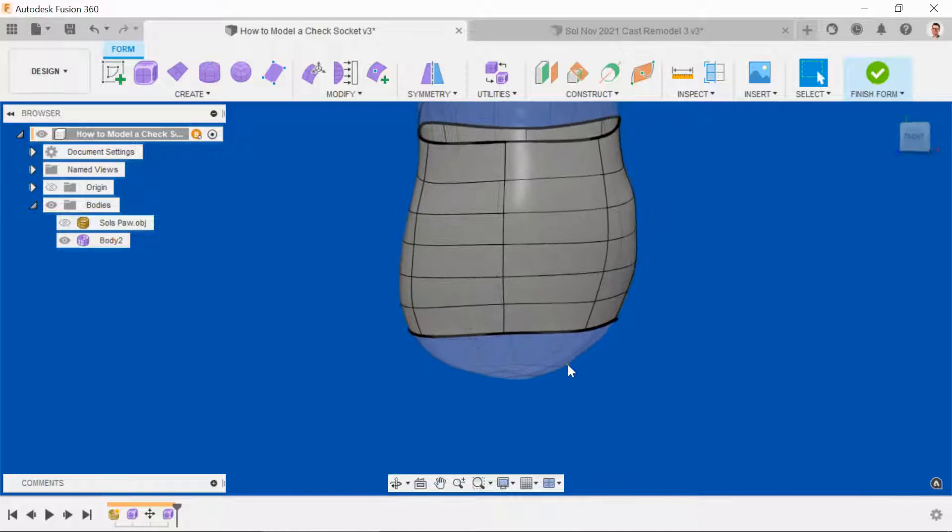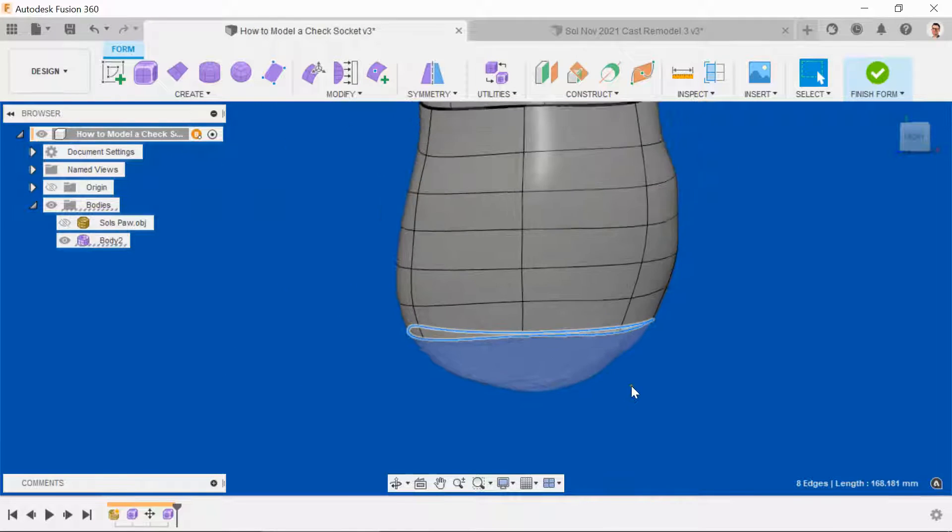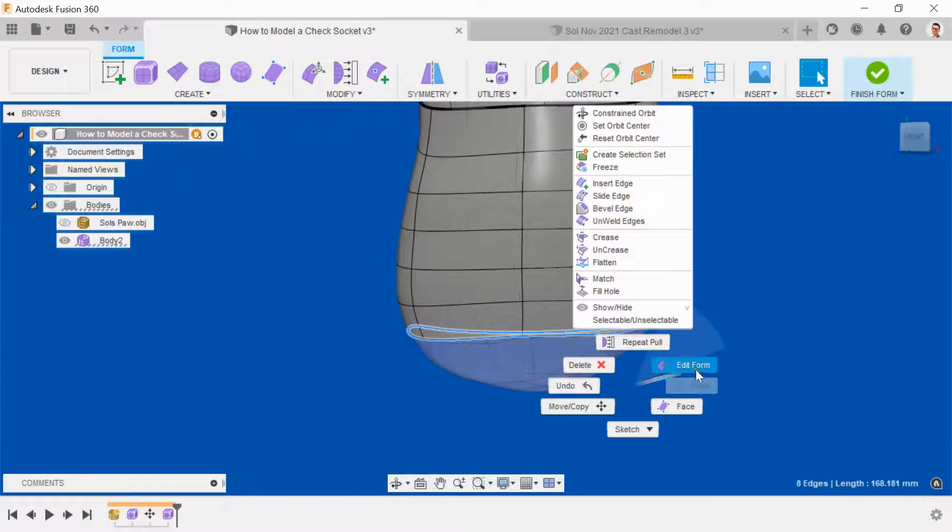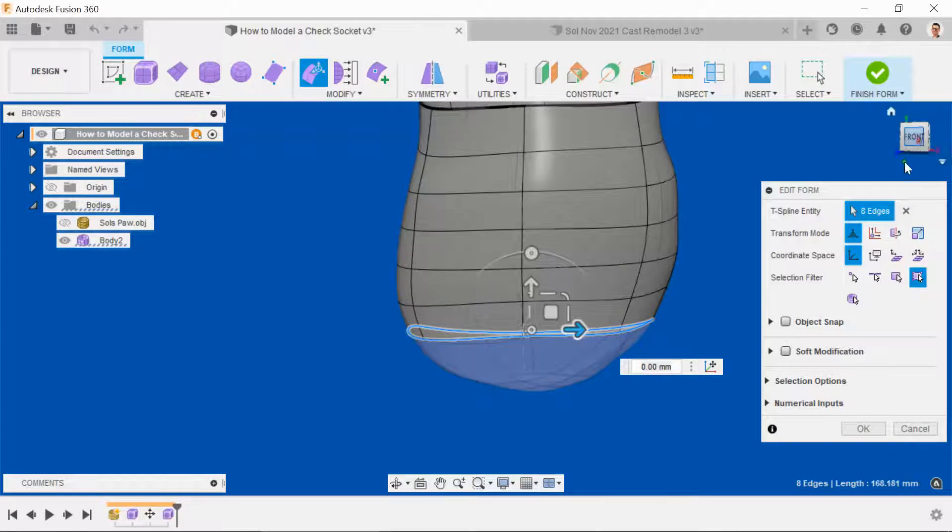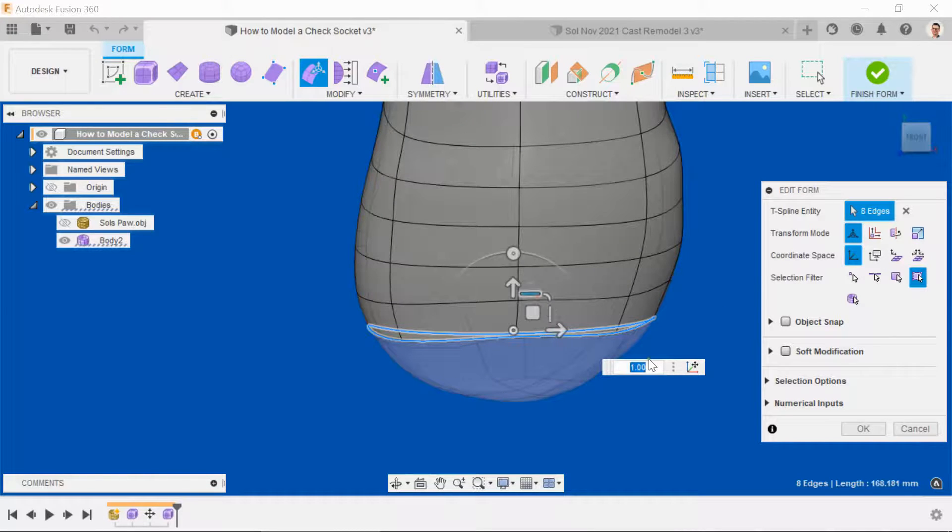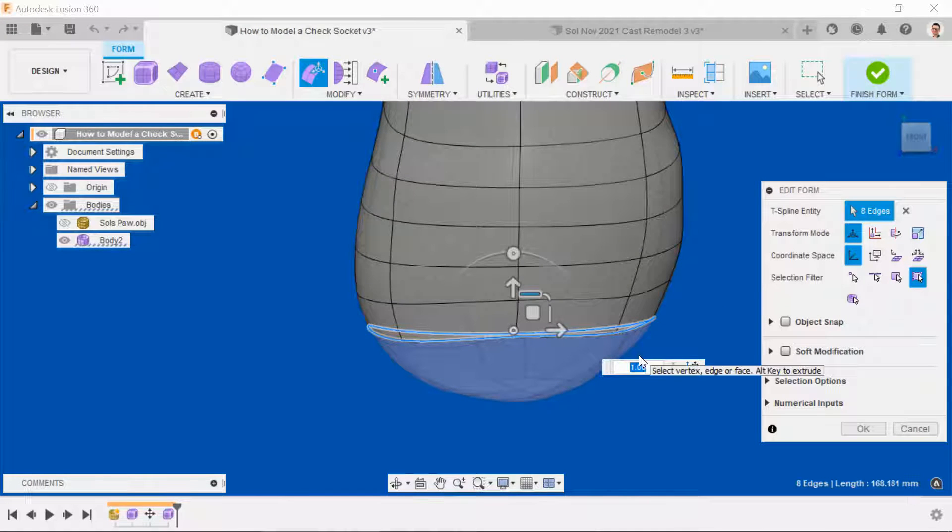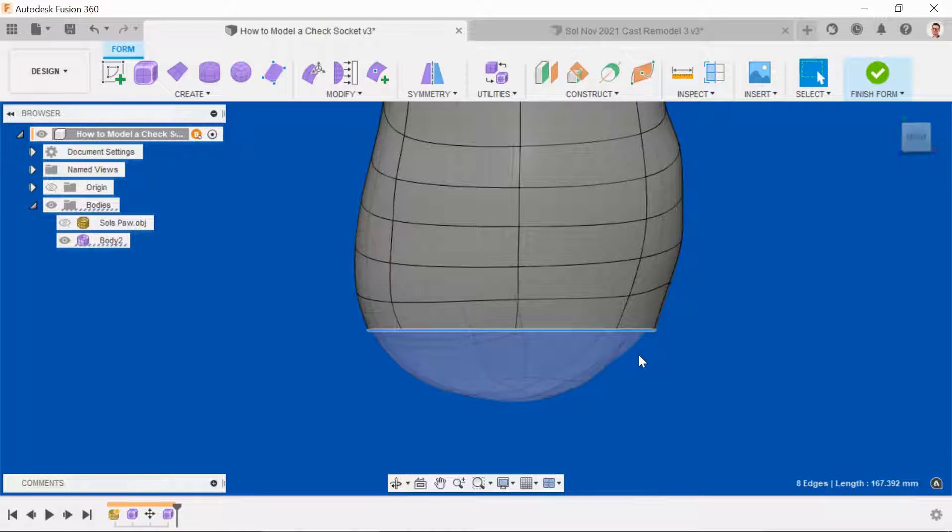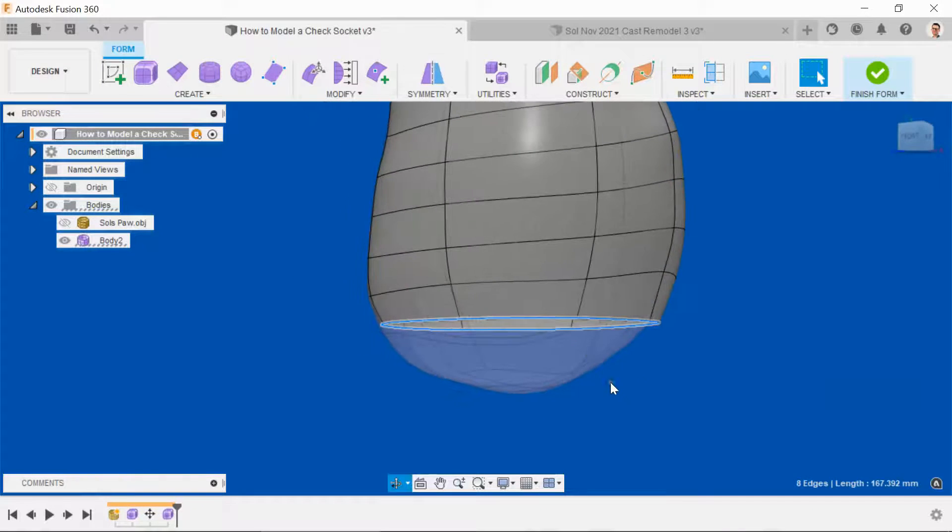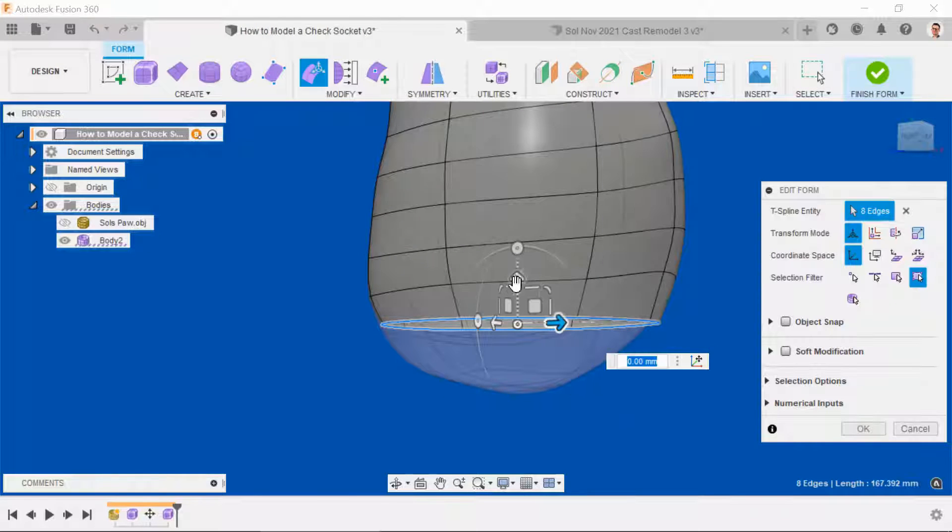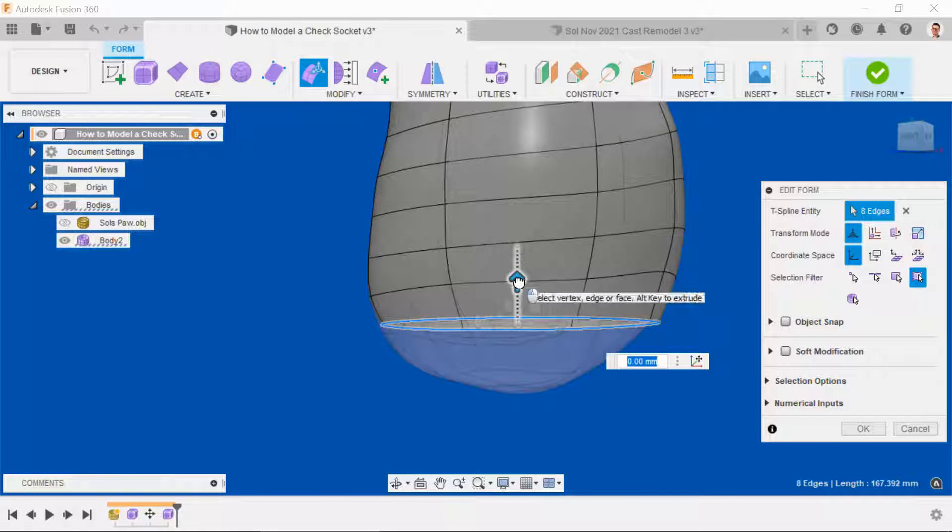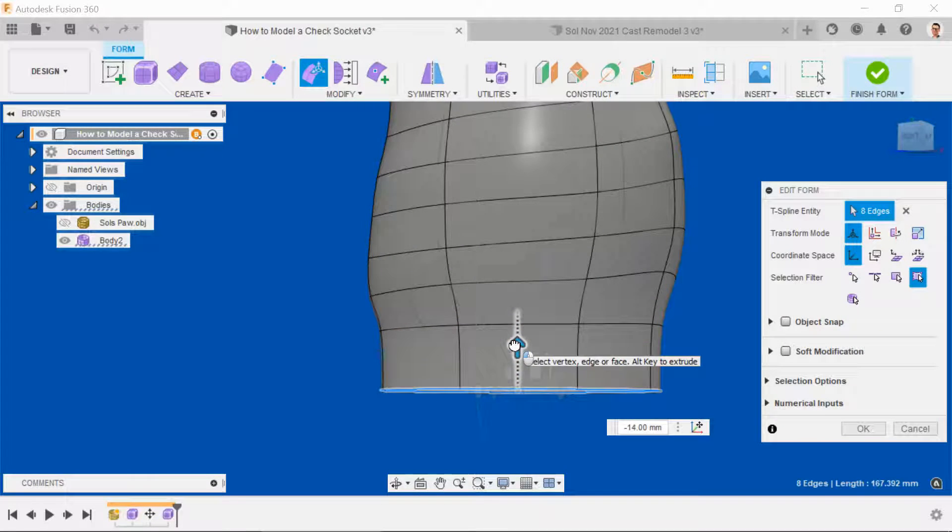Create a little bit more geometry at the bottom, but before we do, let's just get this 100% smooth again. So edit form, and we'll just smooth out those irregularities by manually entering 0.001. Just as we did before, we'll select the bottom edge, edit form, hit the arrow, press Alt, pull down, create some more geometry.